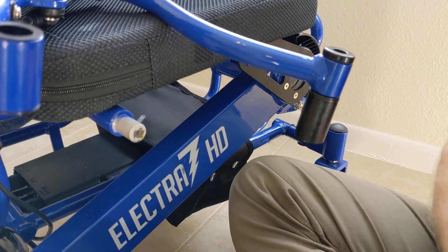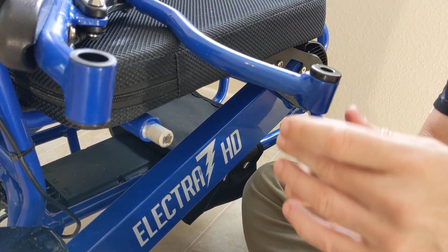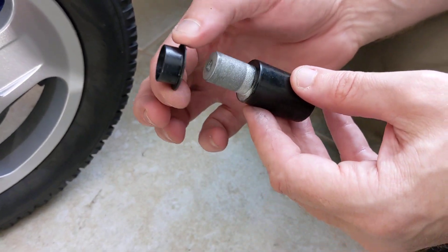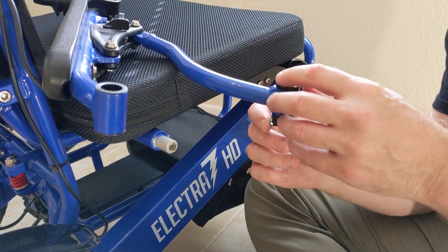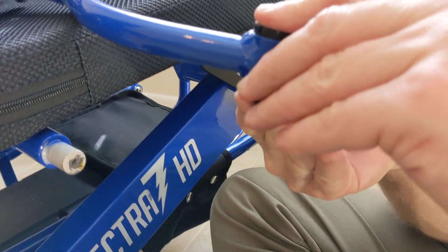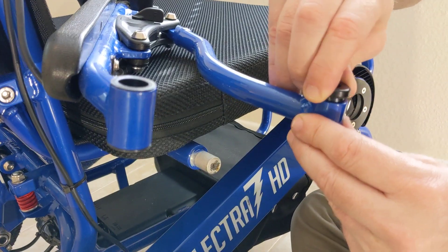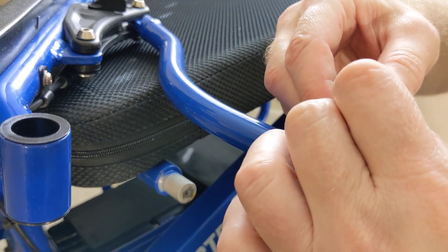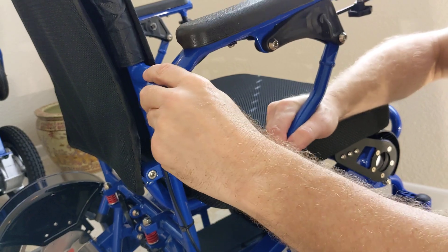One of these got pretty tight, so I'm going to remove it — and look what came off with it. I just want to make certain I don't have the washer with the actual spacer. One washer should go on either side of each armrest. This cap stayed on — that's fine. If I pull the cap out, the actual spacer comes with the cap. You would note that it's fine that the cap is there. All we're going to do here is just align this.